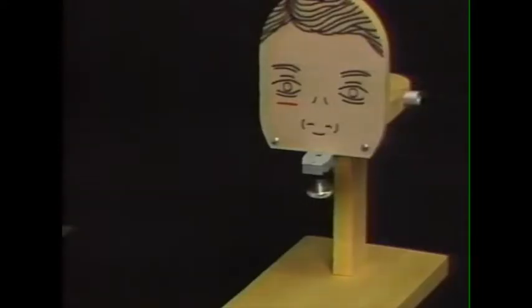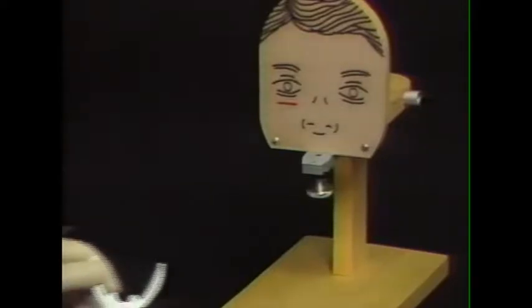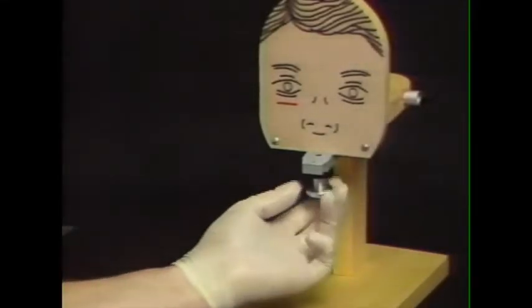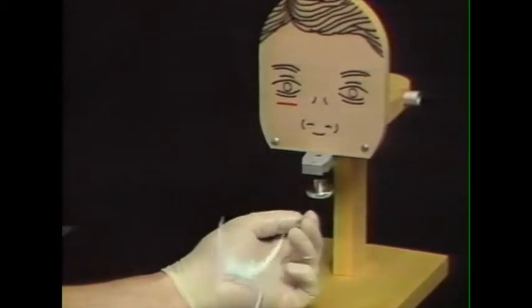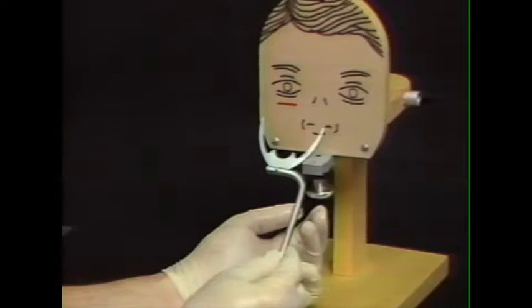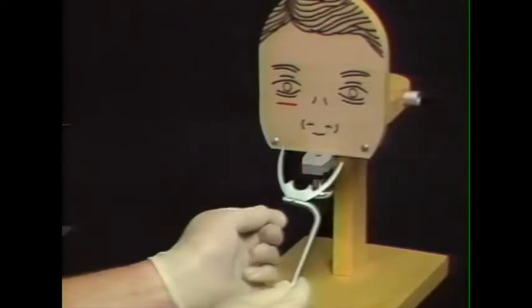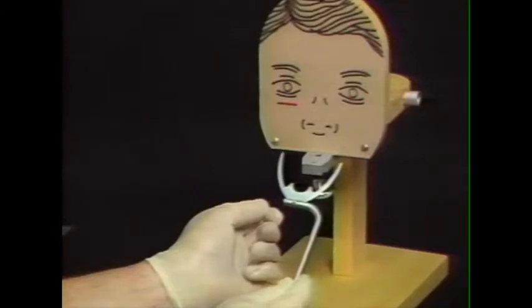To illustrate the use of the component parts of the face bow, we're going to introduce you to Harvey, who is a mannequin set up to train individuals in the use of the face bow. Harvey has a maxilla here that consists of a clamp to which the face bow fork can be placed. The fork is always oriented with this brass rivet on the top here in the upward position.